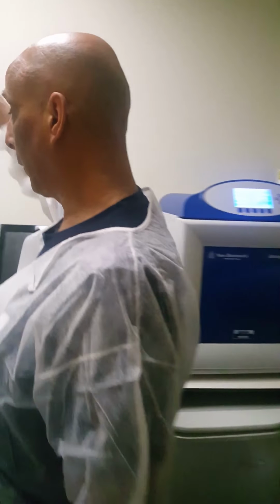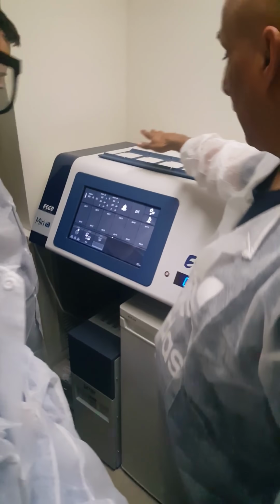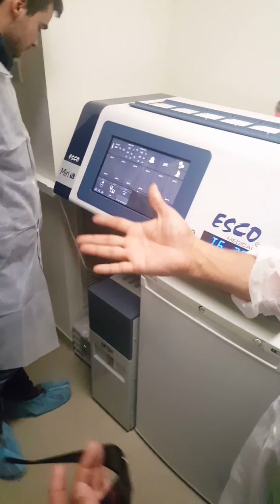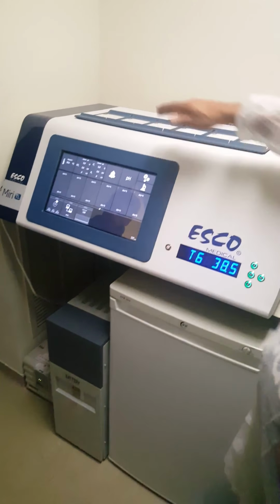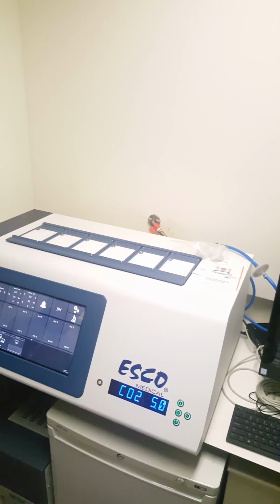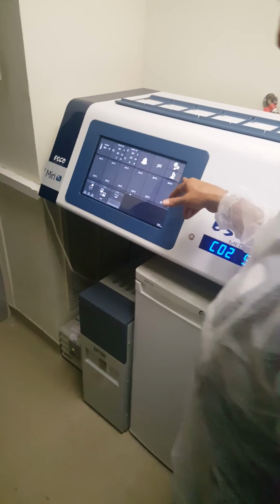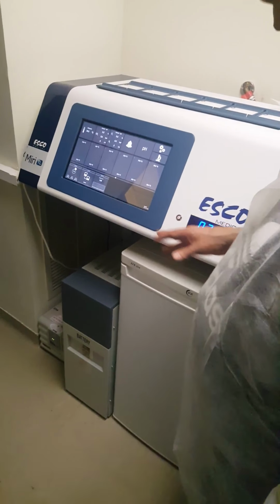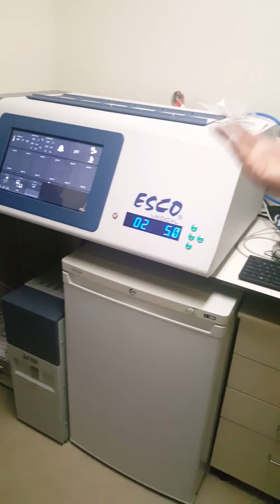The alternative is, after fertilization, to put the embryos, actually the zygote, here in the time-lapse system. This is the microscope, this specific one called the MIRI, and there are six cages, in each one 14 wells, so we can put 14 embryos, and we get 24 hours, 7 days time-lapse of the development.